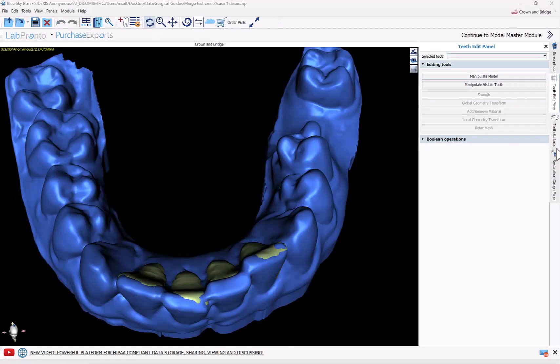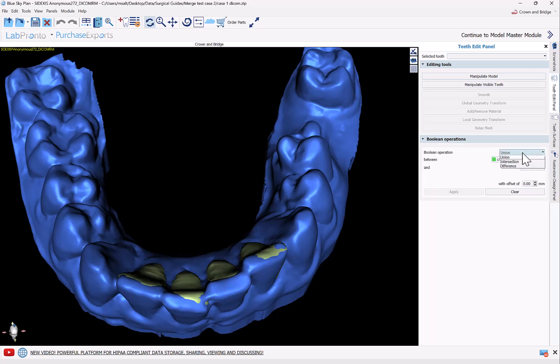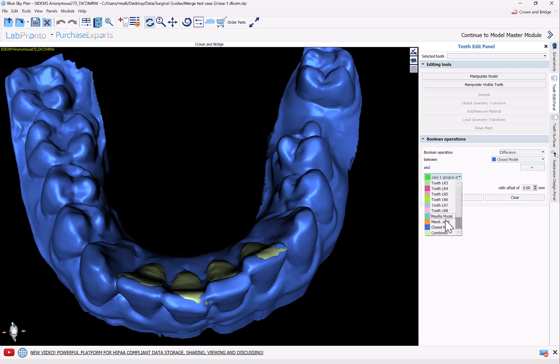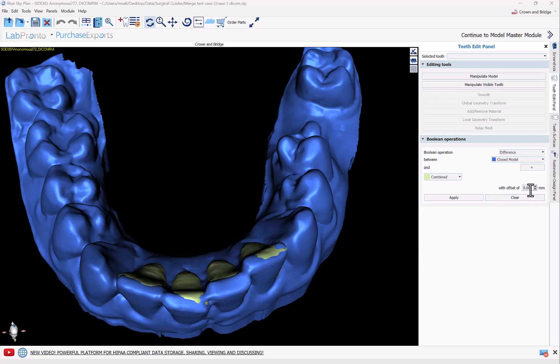We're going to open our Teeth Edit panel and open Boolean Operations. Here, what we're going to do is a difference between our blue closed model and our combined surfaces. But in order to make up for this very slight remaining shell that might be left on the model after we subtract the teeth, we're going to apply a very slight offset — you can decide what you want it to be, 0.4, 0.3, or whatever. Let's go with 0.4 and see if it accomplishes what we want.